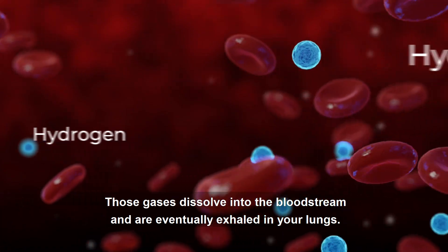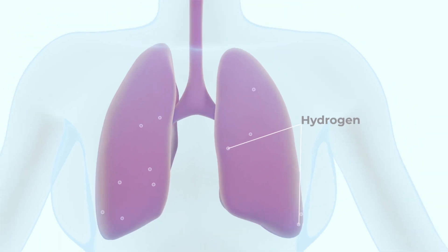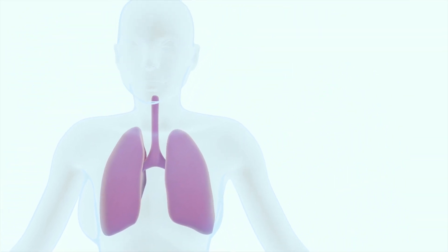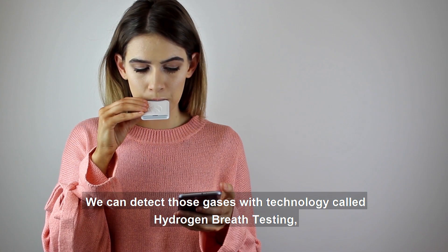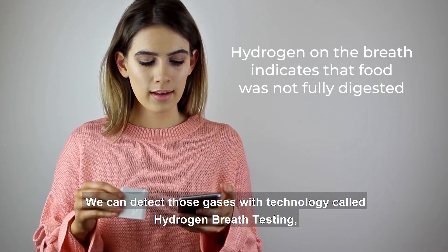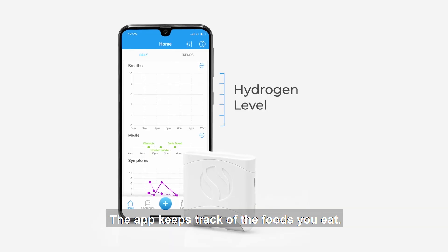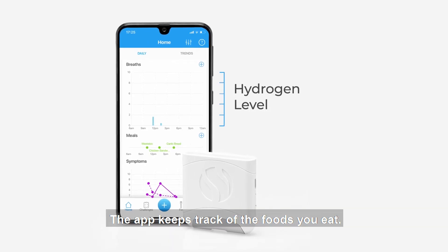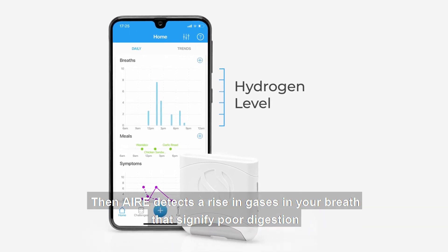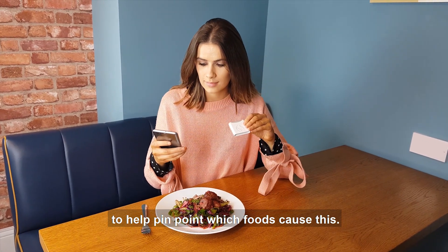Those gases dissolve into the bloodstream and are eventually exhaled in your lungs. We can detect those gases with technology called hydrogen breath testing and let you know which foods are causing problems. The app keeps track of the foods you eat, and when it detects a rise in gases in your breath that signify poor digestion, it pinpoints which foods cause this.